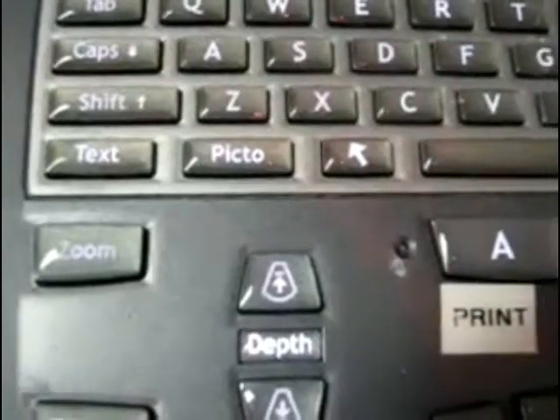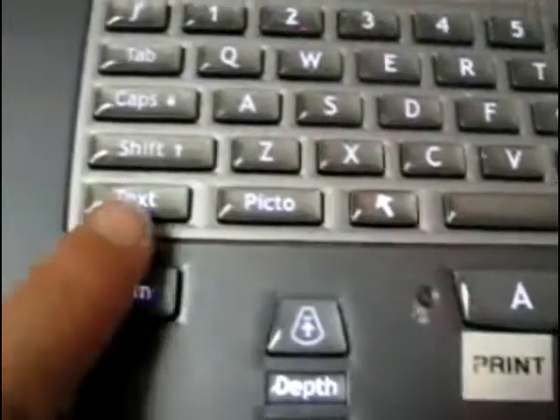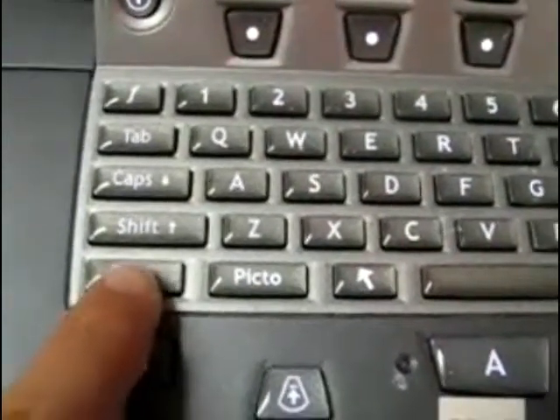In order to add labels, in the lower left-hand portion of the keyboard there is a text button and a picto button. If the text button is pressed, a cursor comes up and whatever you type will appear on the screen. If you prefer picto, hit the picto button and a picture of a body comes up on the screen, and you may move the marker to the area you are scanning using the trackboard.